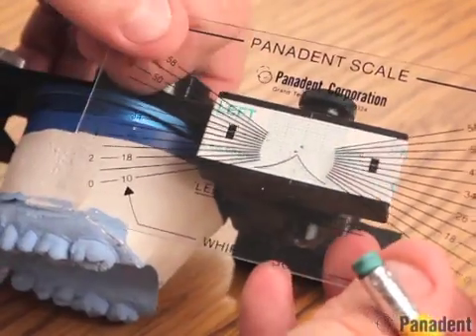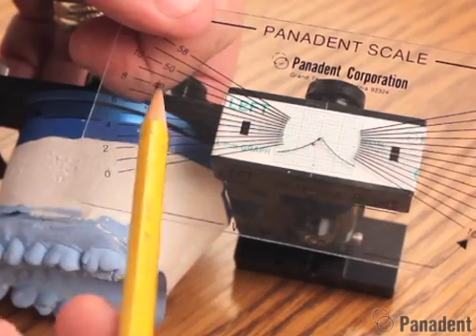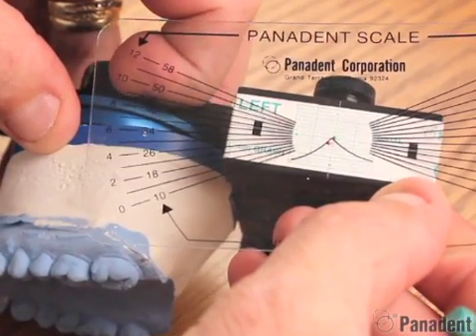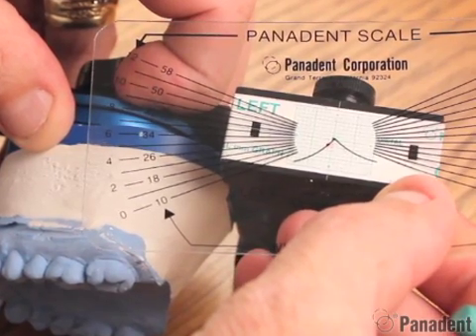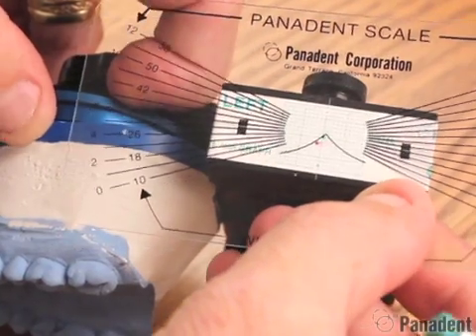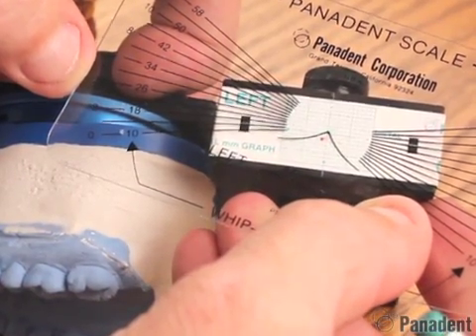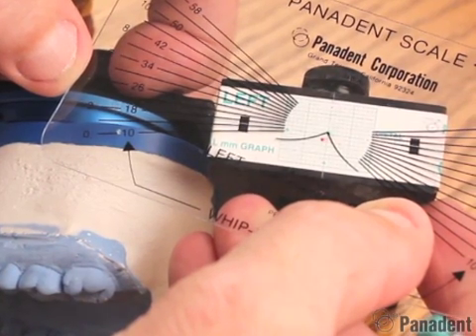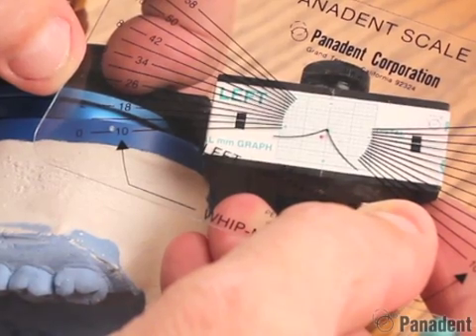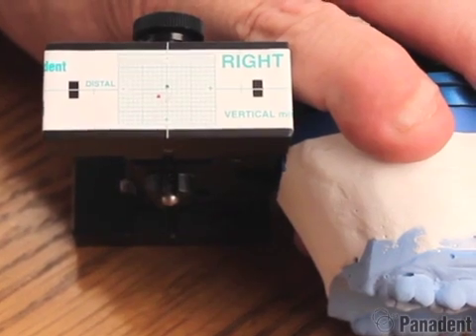This could either mean a pure slide or part slide part fulcrum. We can actually use our AxiPath protractor where we have the patient's protrusive pathway. We know from the patient's protrusive check bite that their angulation was at number 8, so we start with the apex of the pathway at the CR point and rotate this to number 8, lining up with the horizontal line on the graph support. We can now see that the MIP spot is right on the patient's pathway, which means this is a 100% slide. If the patient had a number 2 angulation and we rotate to number 2, the MIP red spot is below the patient's pathway — meaning part slide part fulcrum. The distance from the vertical line forward is the amount of slide, and the distance from the pathway down to the spot is fulcrum. On the patient's right side, when they bite their teeth together the condyle just moves down and backward, which is 100% fulcrum.